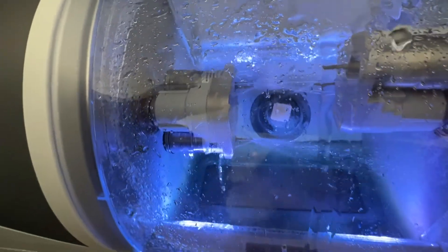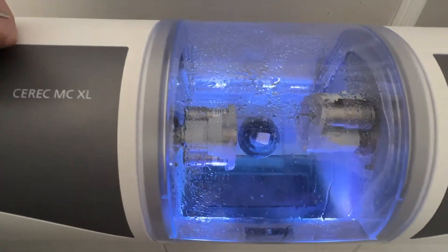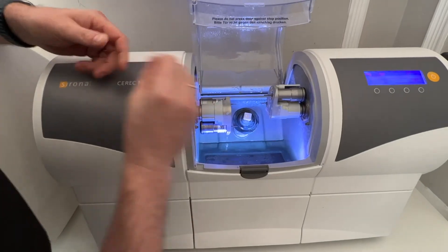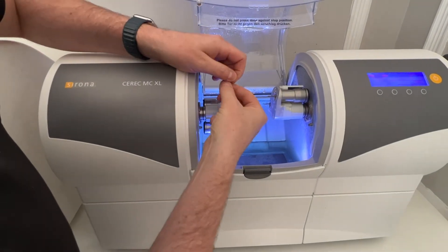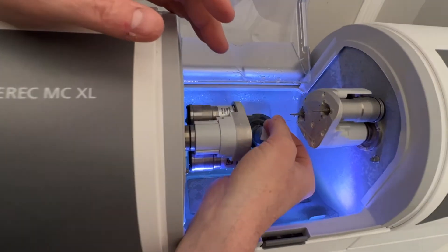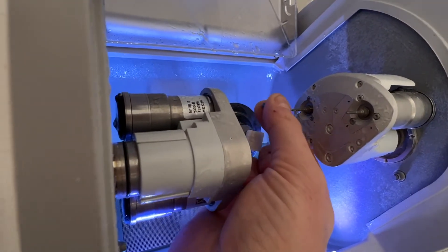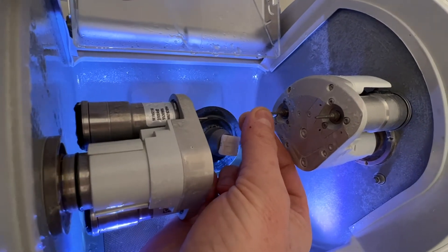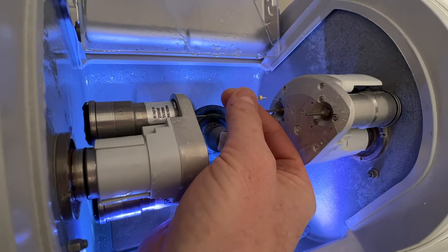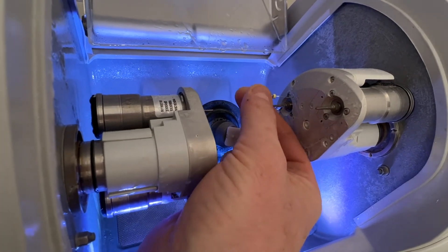I'm going to turn this pump off, but you can see the one on the other side wasn't quite hitting. So I'm going to open this up again and just very gently slide this in. I don't really want to face any obstruction, I just want to tickle it inside here very nice and gentle. These get clogged up very easily, especially if you're doing zirconia cases.